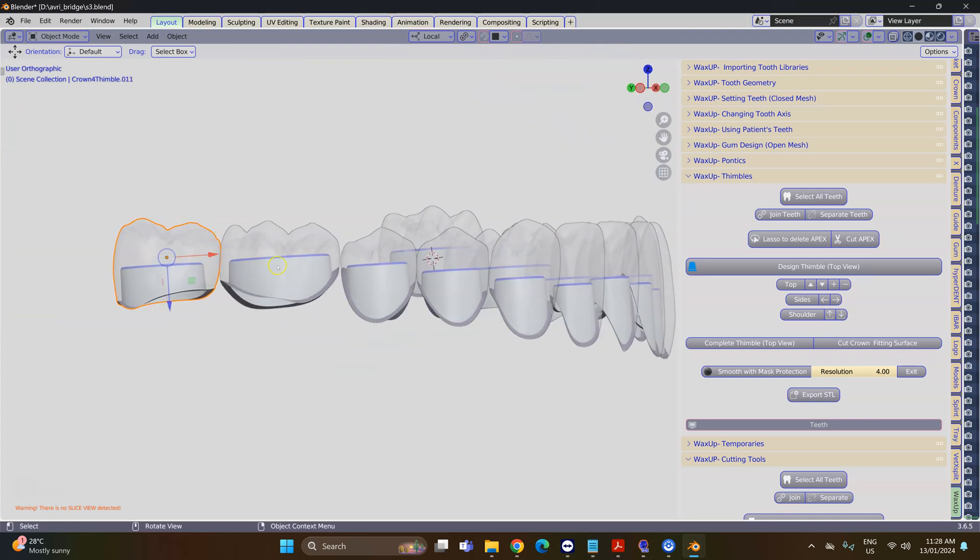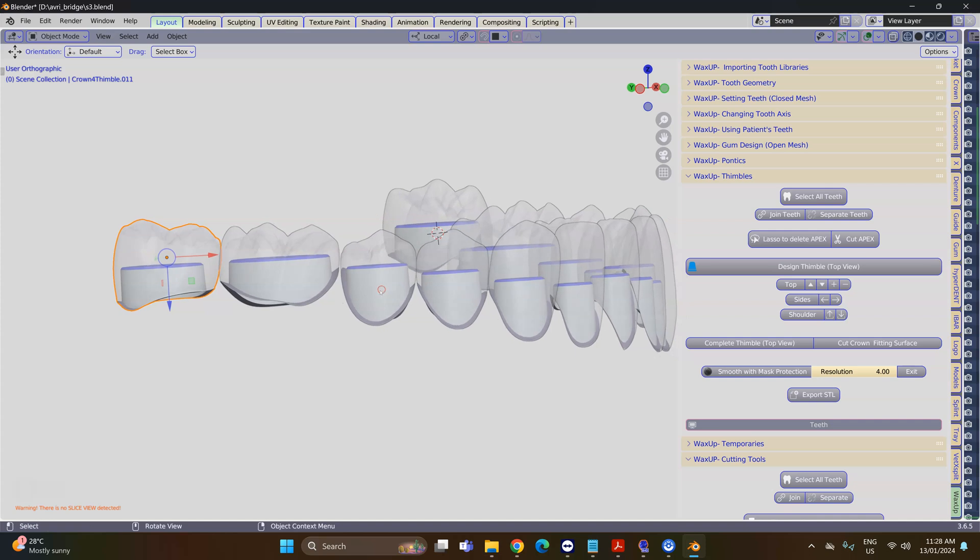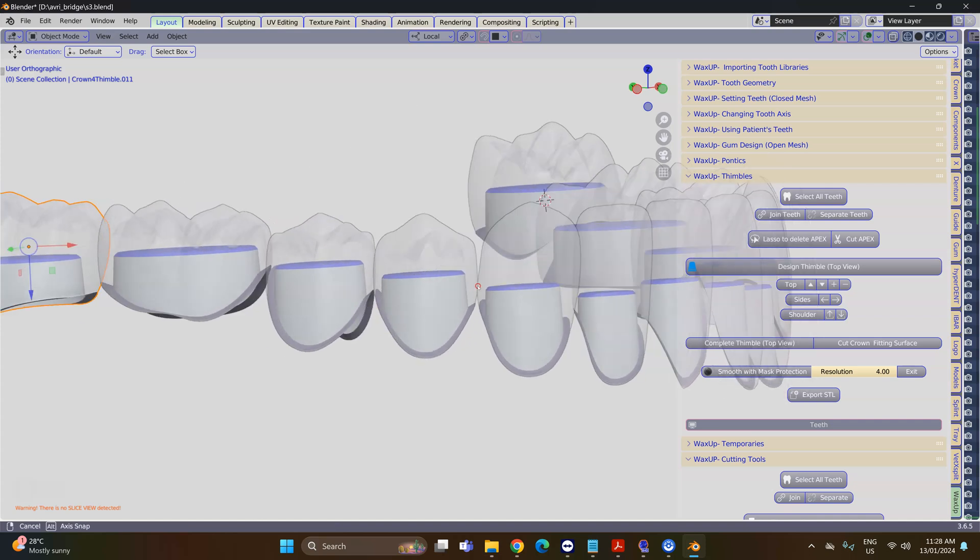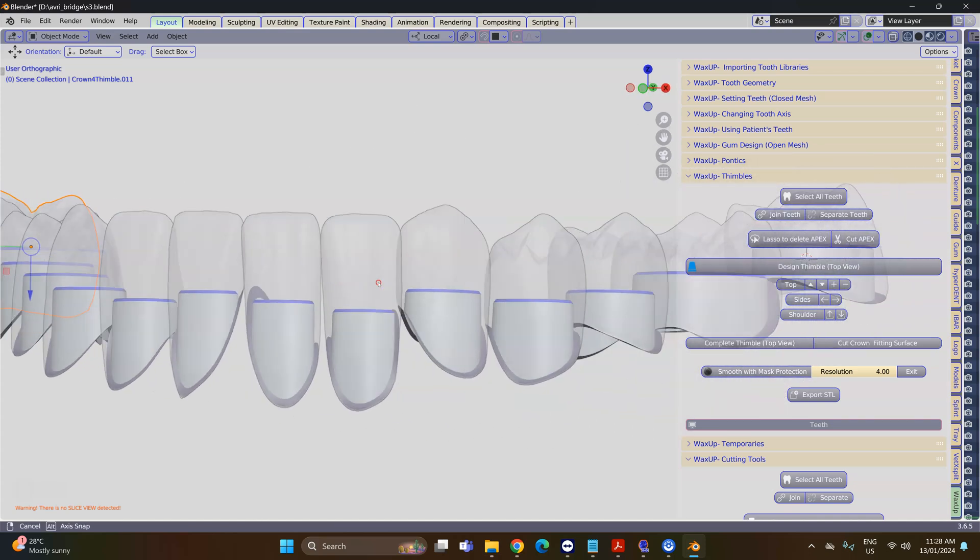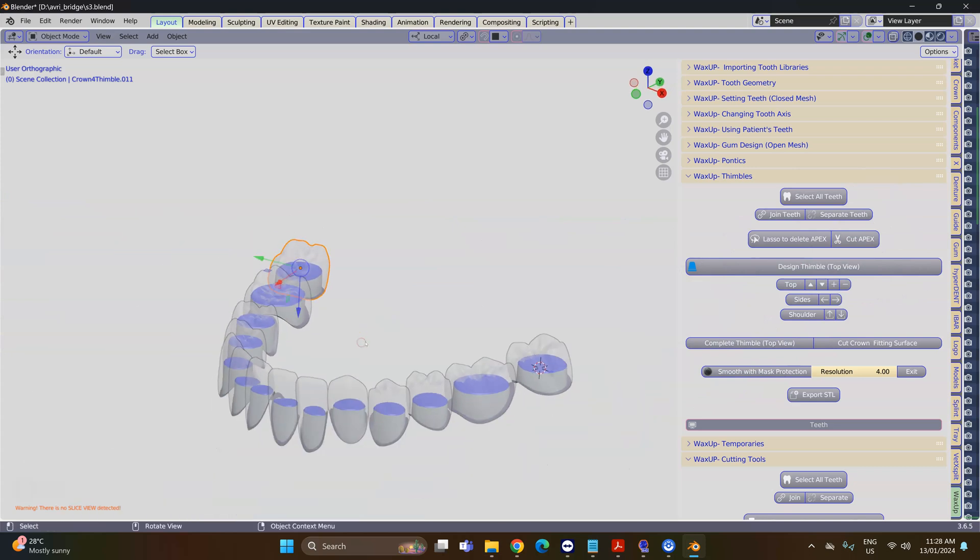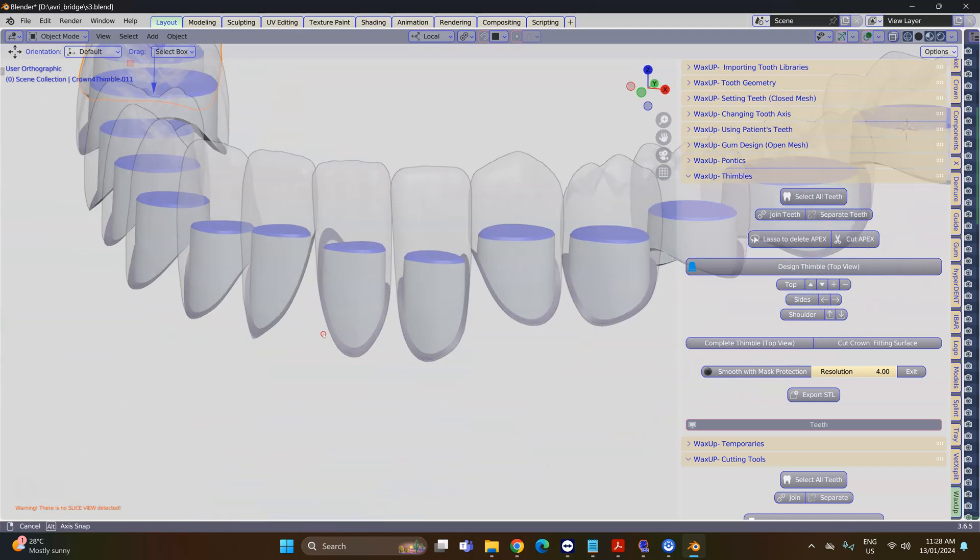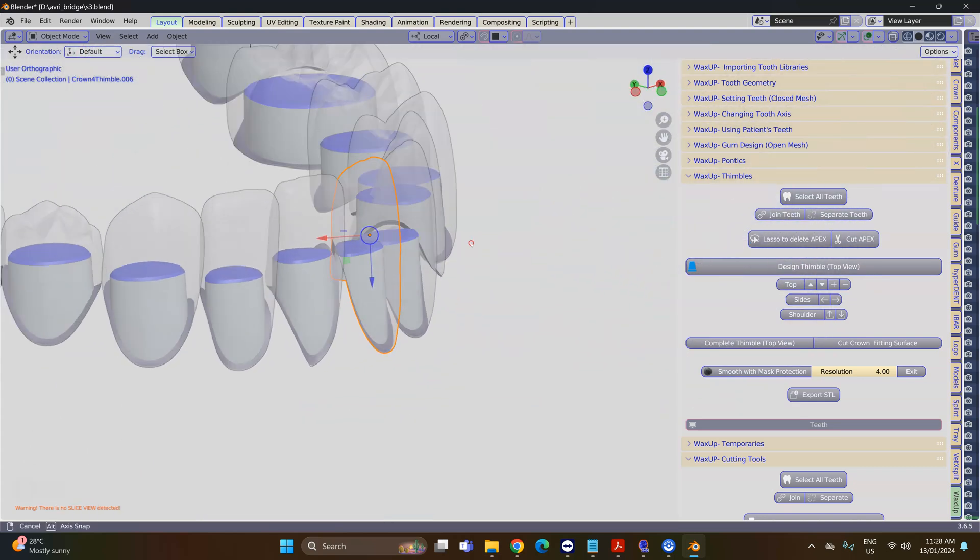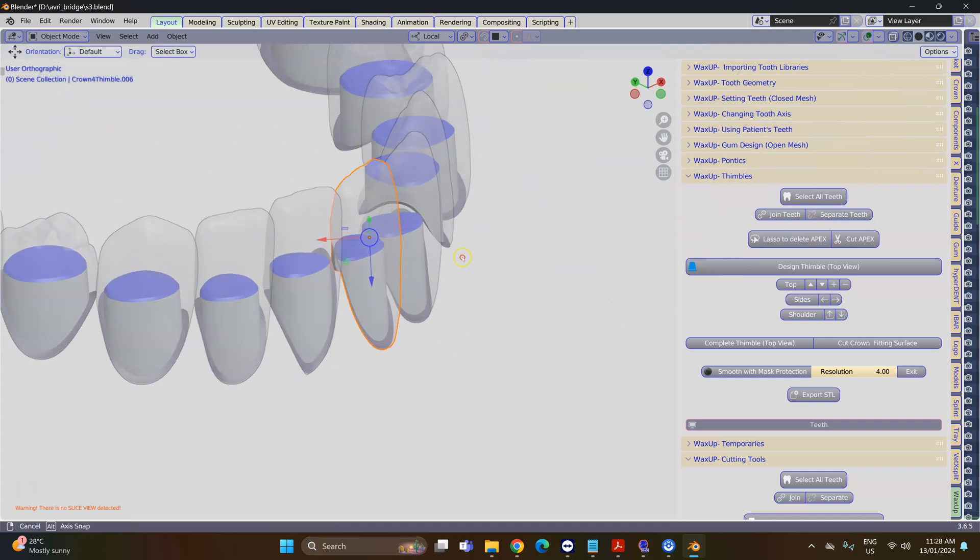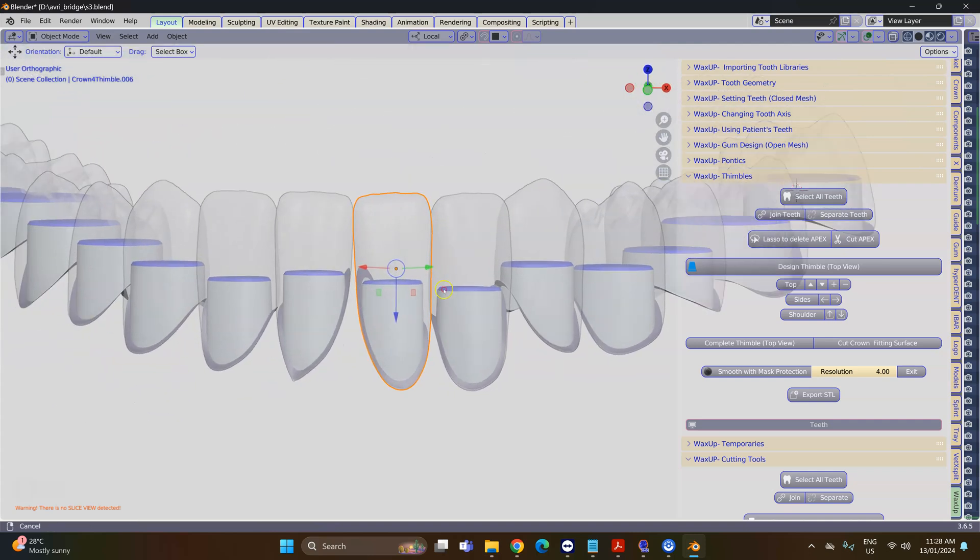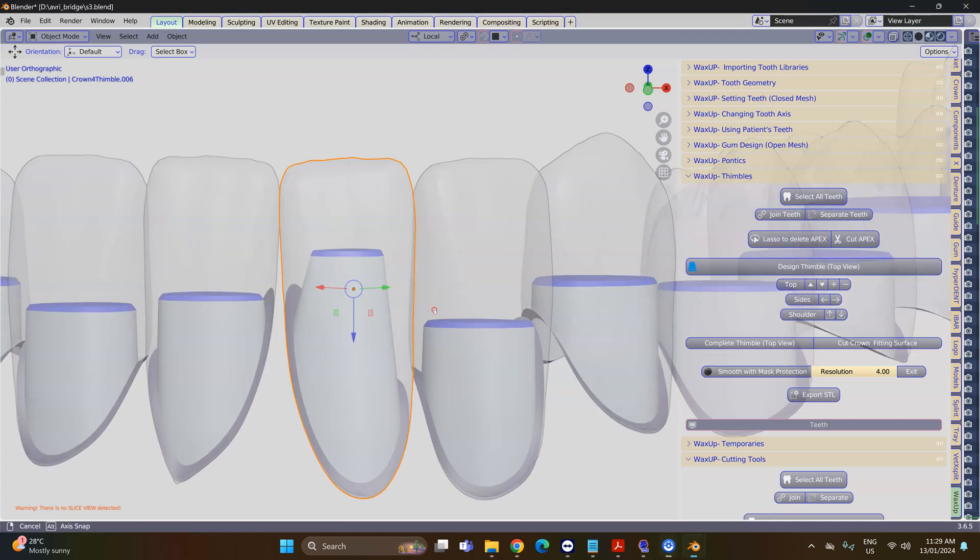But we can manipulate the inside of these teeth. In order to manipulate it, I will demonstrate—we're going to select one of the teeth and I'm going to go up with the arrow up, and the minus will make it narrower.